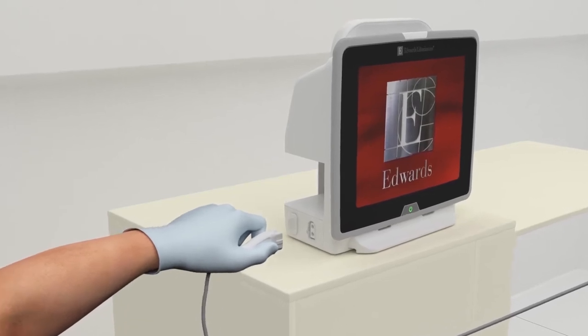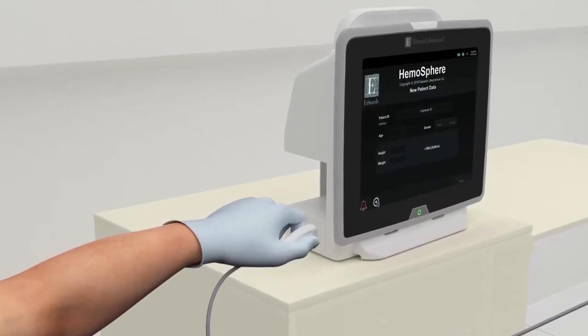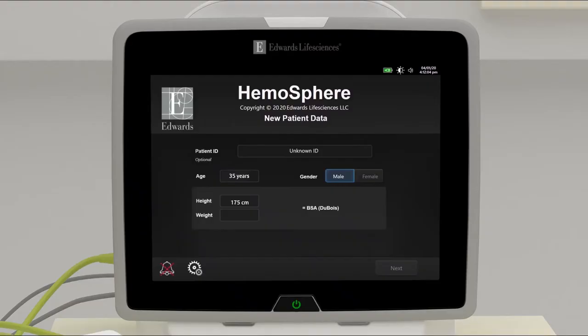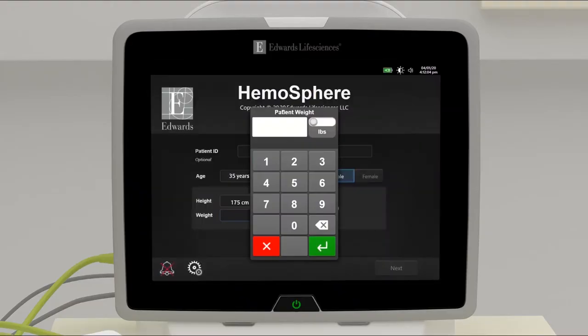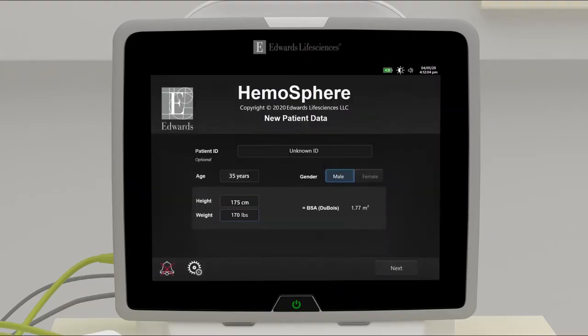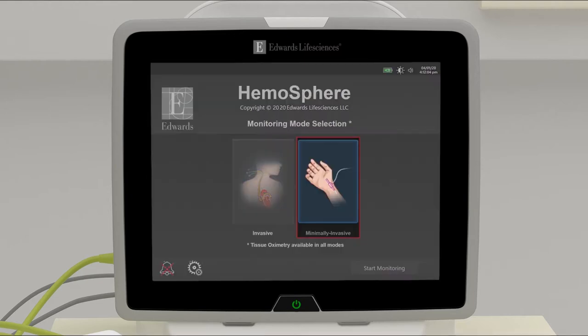Insert desired hemodynamic technology module and/or insert pressure cable. Enter and confirm patient demographics, then select monitoring technology.